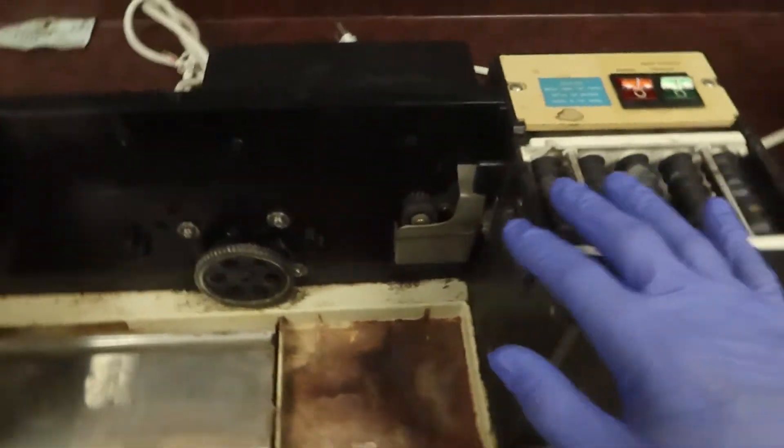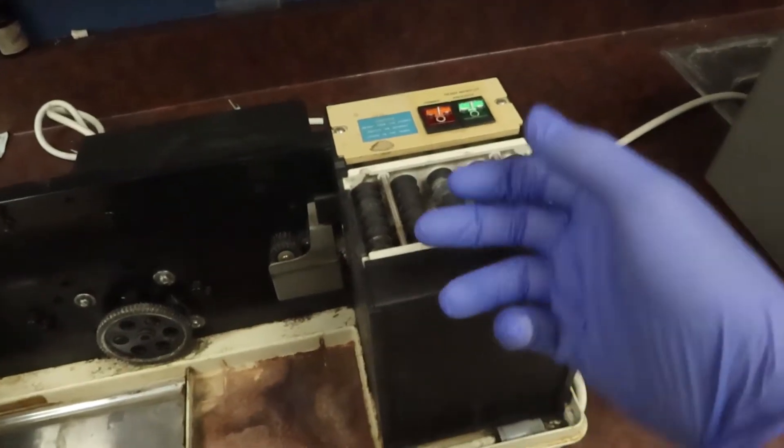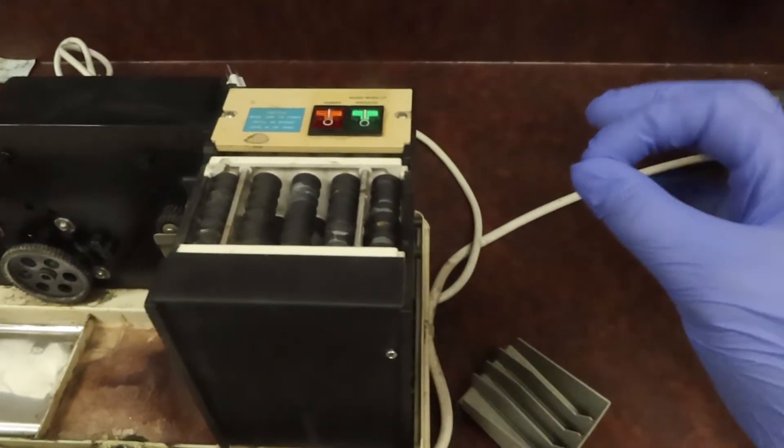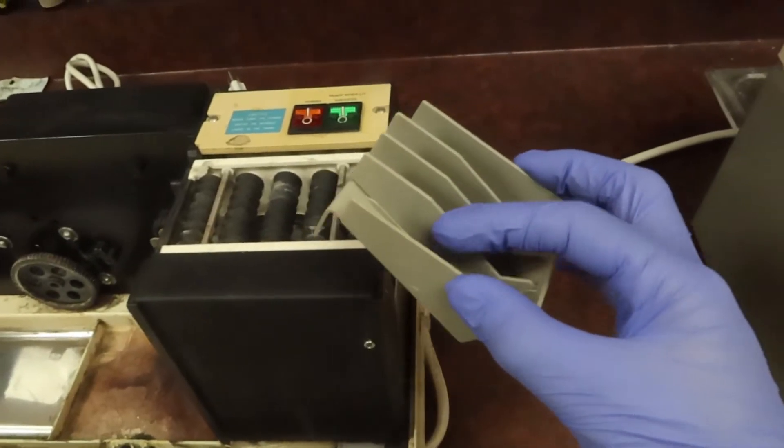When it goes in here, there's going to be a nice heater built into here. If working, it's going to dry your films and make sure they are nice and prepared to be mounted as they come out and fall into these little slots that are perfect for managing your x-rays.